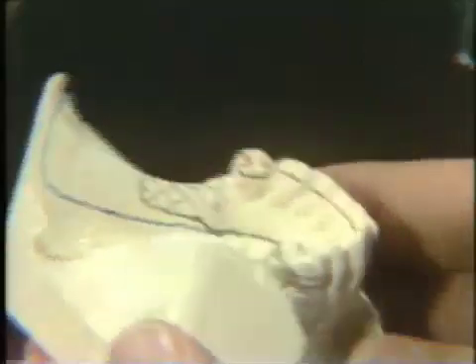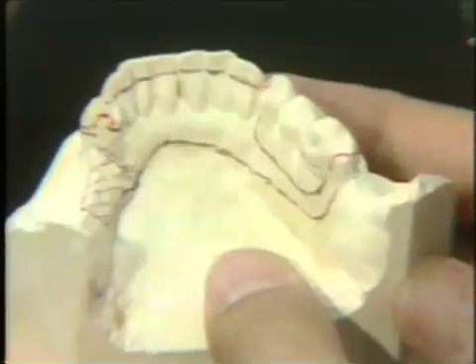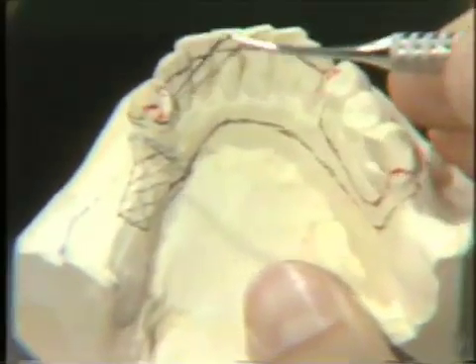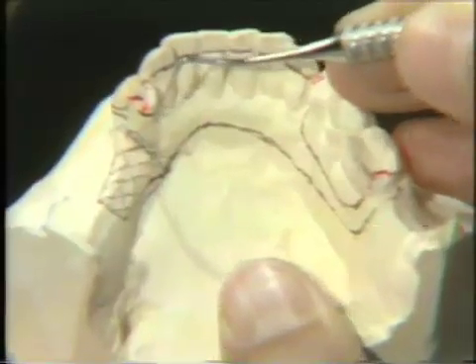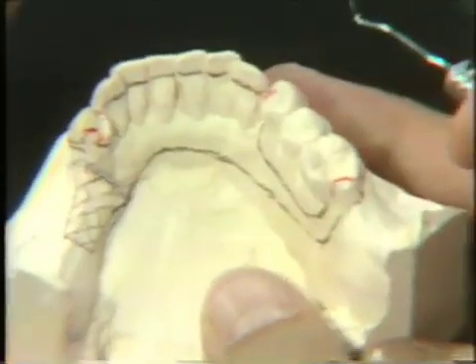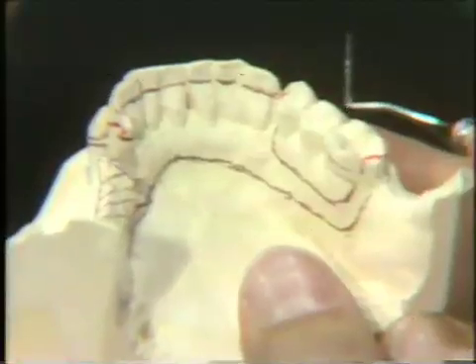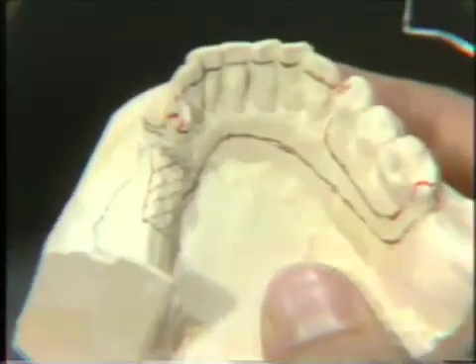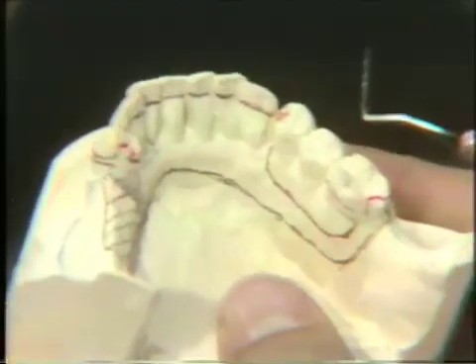This framework will be used to potentially do our treatment planning for the patient. We now see where we will need to prepare rest seats and where we will need to disc lingual or axial surfaces. It will also be used as a guide to be sent to the laboratory when the partial denture is going to be waxed up. Every treatment plan and every partial denture constructed should have a design drawn by the dentist, sent to the laboratory as an aid in fabricating an accurate and functionally good removable partial denture.